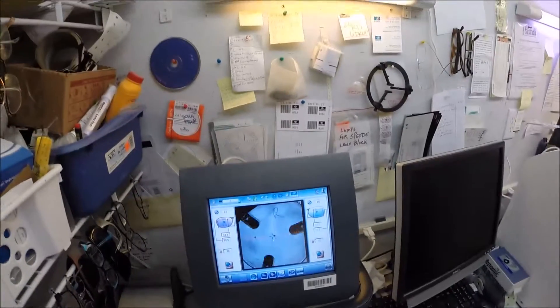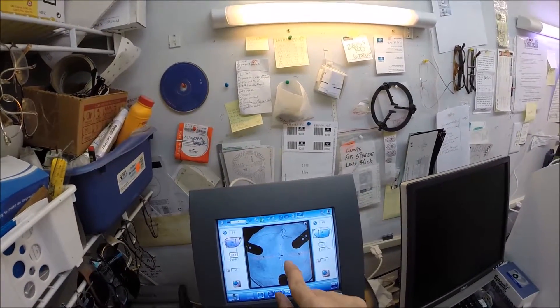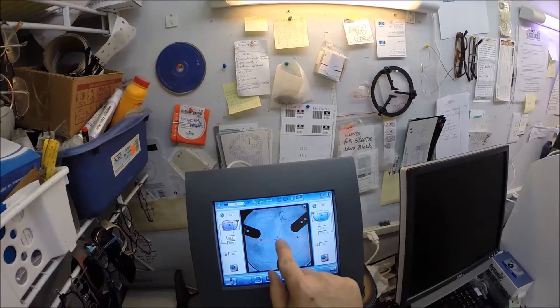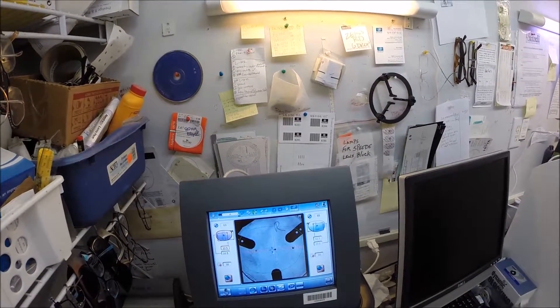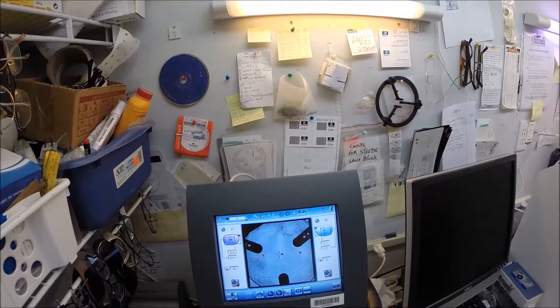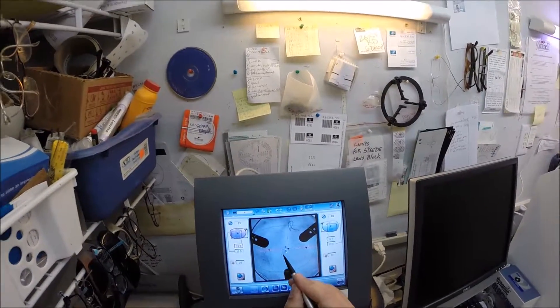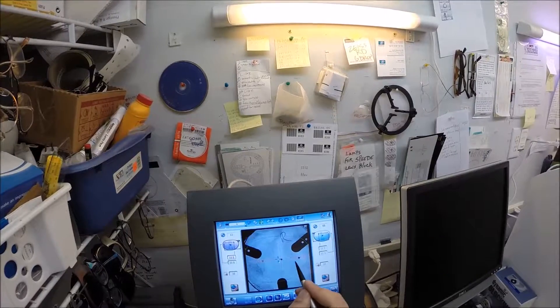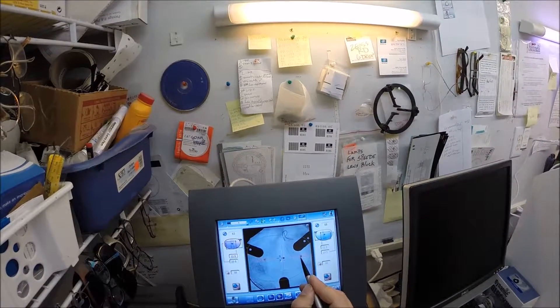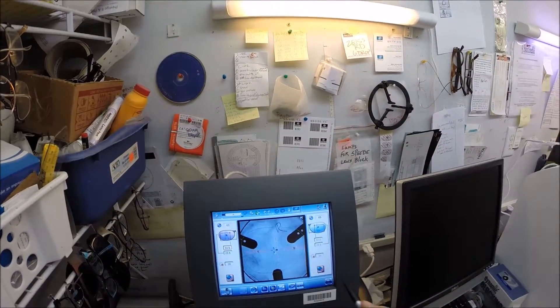This dot in the center is going to be your optical center. The blue cross is the geometric center of your frame. With your pupillary distance, I'm going to get that first dot right there inside that box, and then these other two dots will line up on that one meridian.